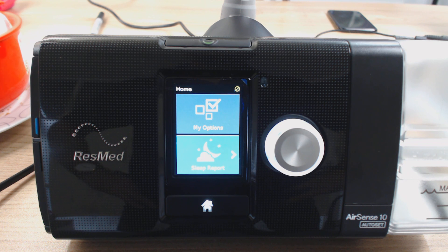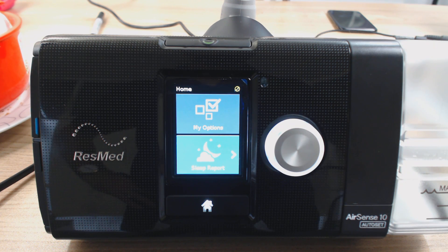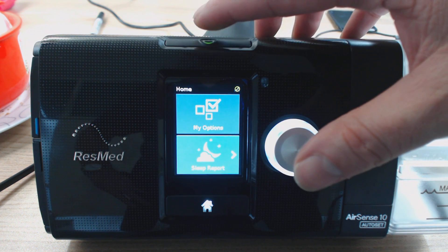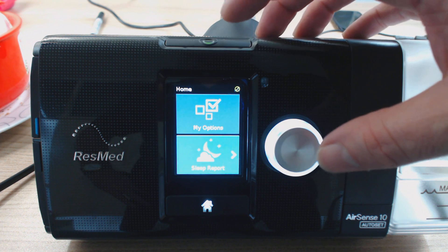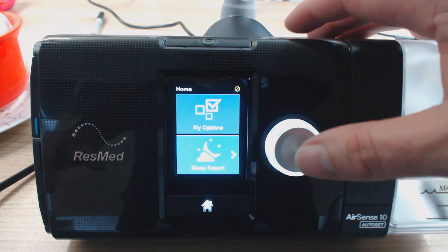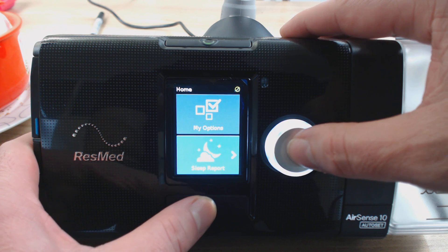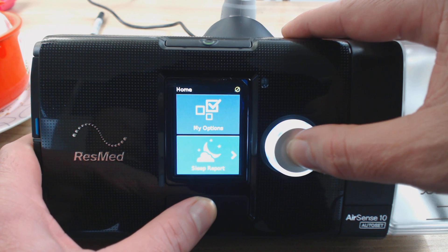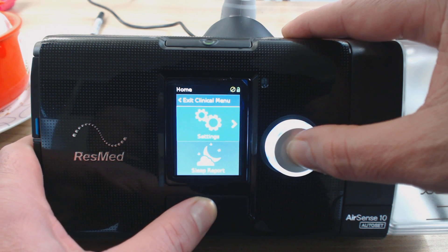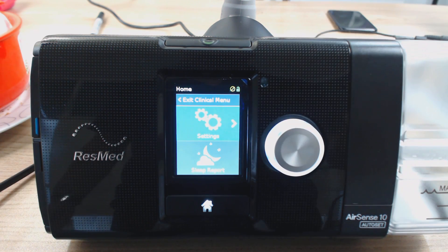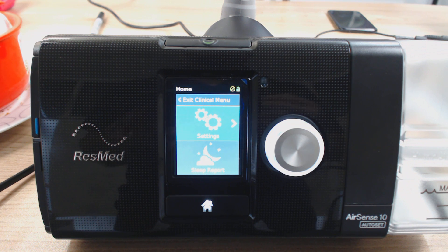In order to get into the clinical menu, what we first have to do is press and hold the click wheel plus the home button at the same time. Press and hold those two buttons simultaneously, keep holding them in, and then all of a sudden it says 'exit clinical menu.' So we're in now. As soon as that comes up and it says exit clinical menu, we're into the advanced settings.